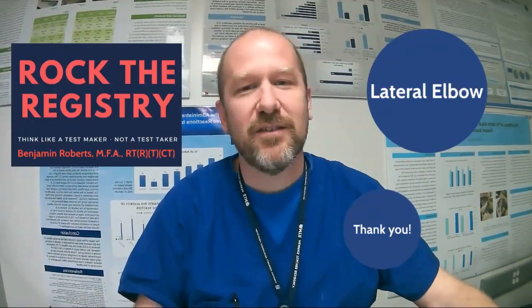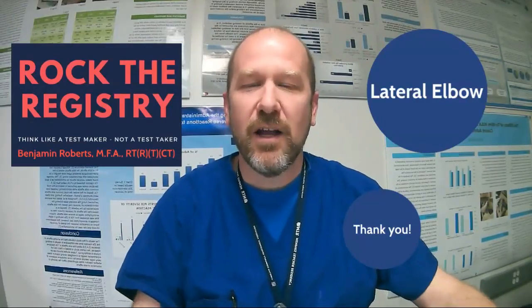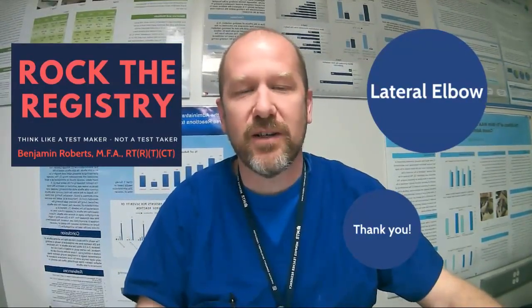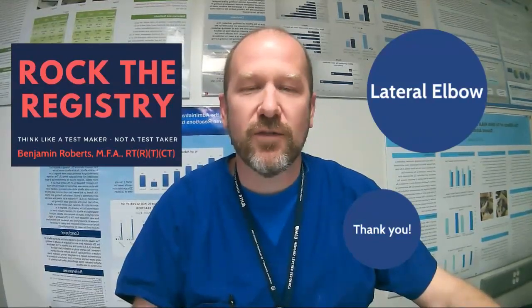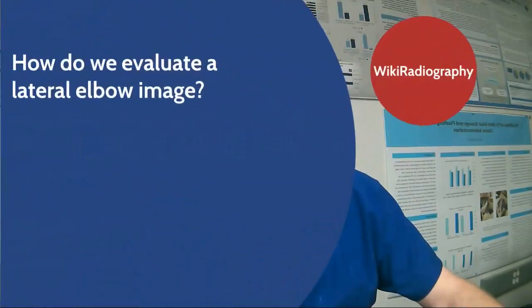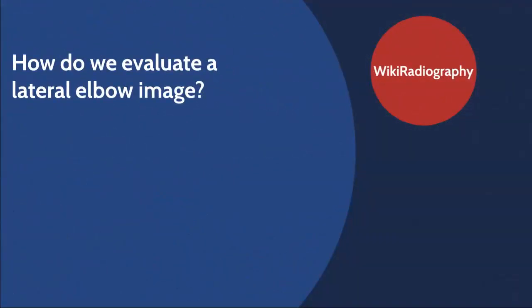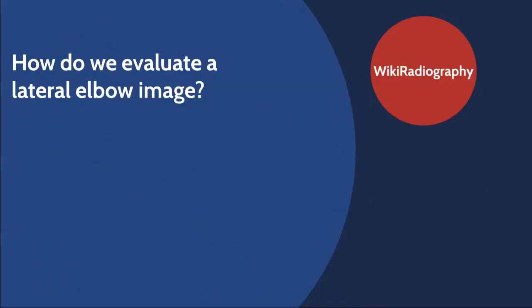Welcome to today's video. I'm super excited to be talking to you about ways to evaluate the lateral elbow examination. The question for us today is: how do we evaluate a lateral elbow image?